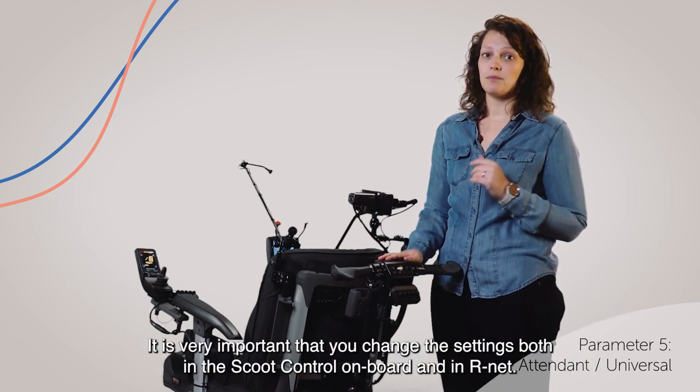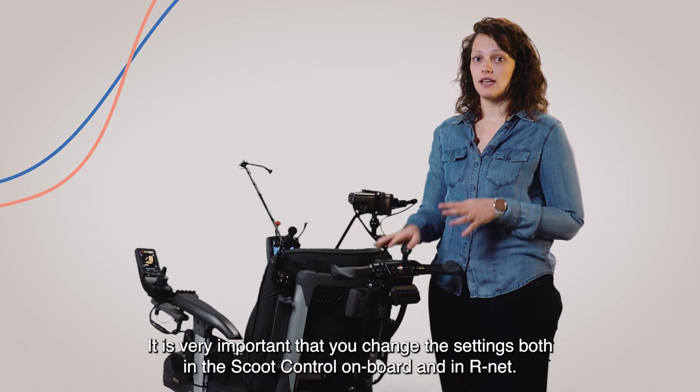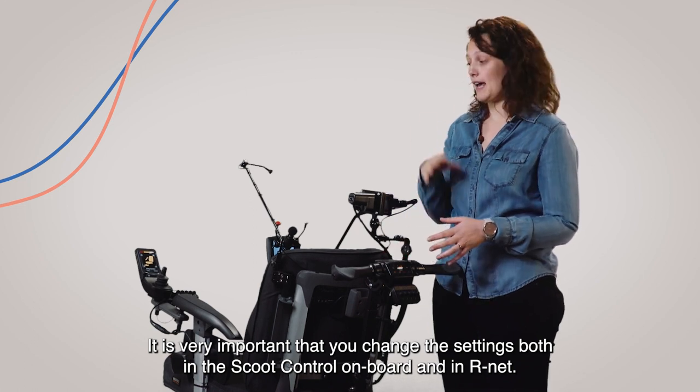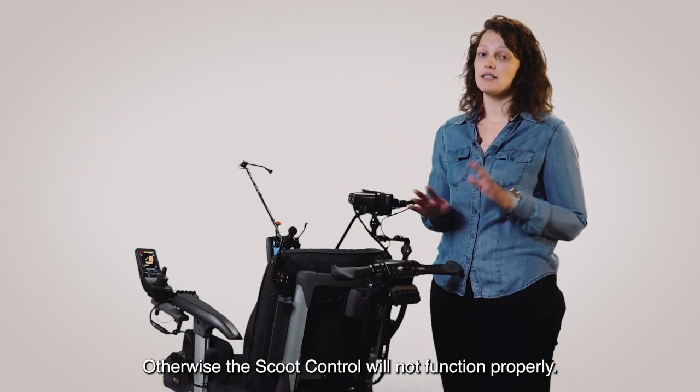It is very important that you change the settings both in the scoot control onboard and in R-Net. Otherwise, the scoot control will not function properly.